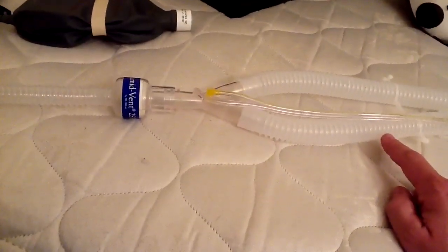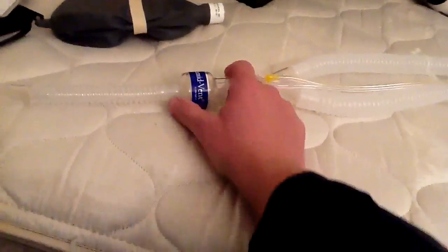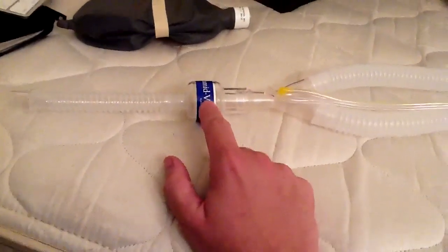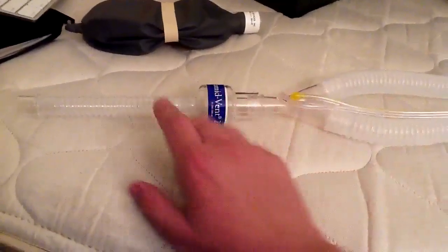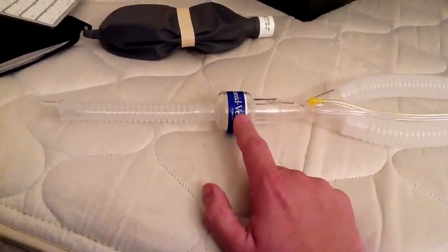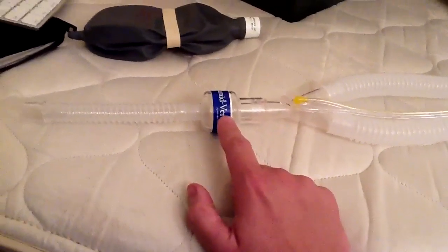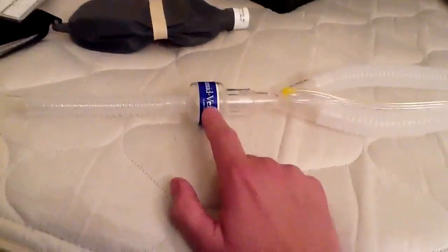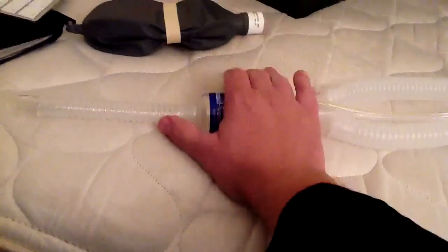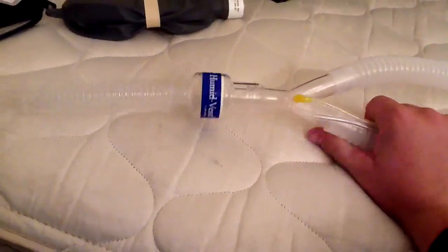Being able to make that differentiation is important. This will actually attach to the distal end of the endotracheal tube. What this does is it actually collects some of the exhaled heat and moisture from the patient and, in essence, recirculates it — very similar to what's known as a balaclava, if any of you are familiar with cold weather environments. Because I have a patient who is intubated, I've actually bypassed their upper airway, where most of the heating and humidification occurs. We are essentially delivering cold gas to the patient, which can impair the mucociliary escalator transport mechanism and cause a whole constellation of other problems. While an HME is certainly not ideal and cannot provide 100% body humidity or 100% efficiency in heat, it is certainly better than nothing.